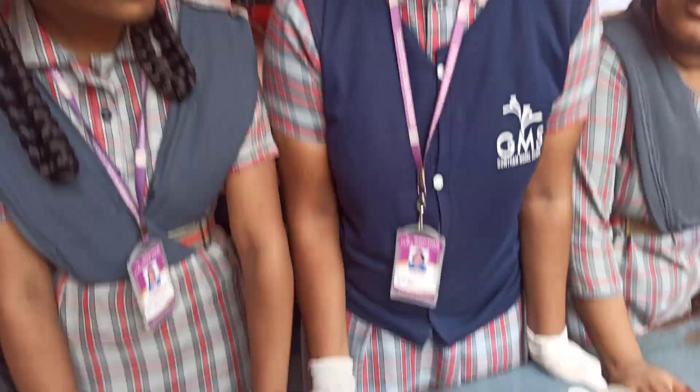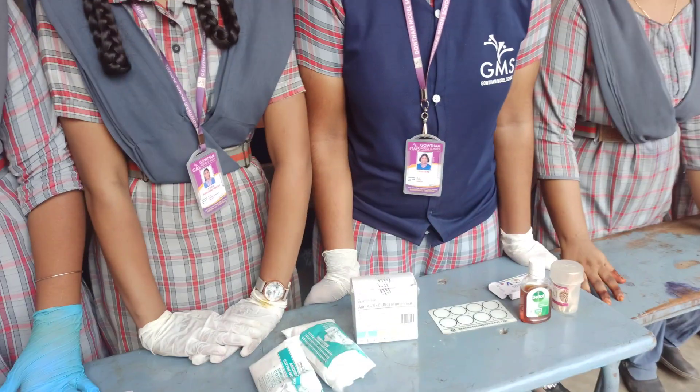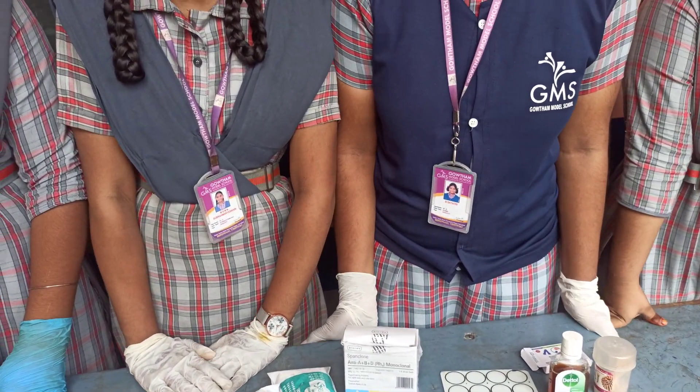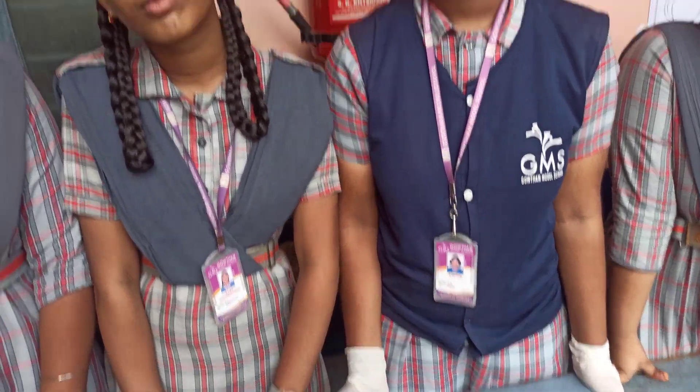It is about blood group testing. There are 4 blood groups: A group, B group, AB group, and O group. How much time will it take when you test the blood?